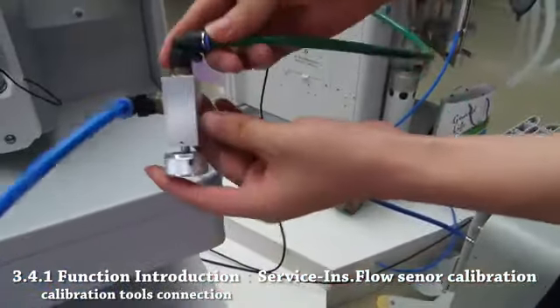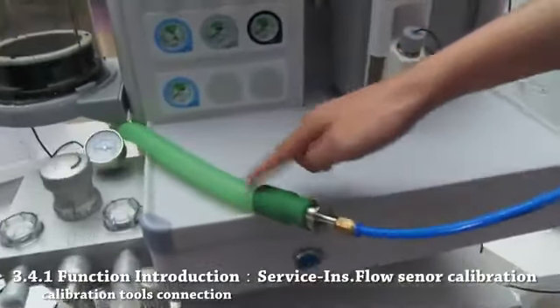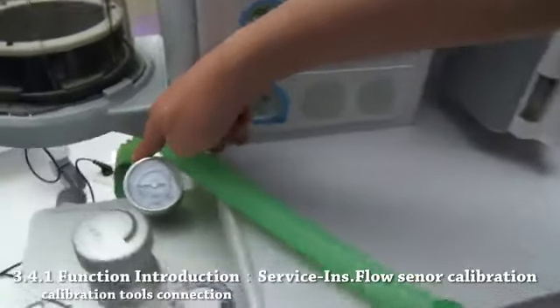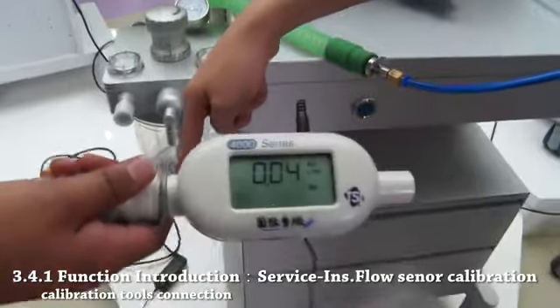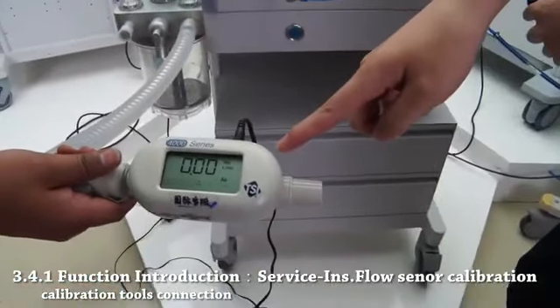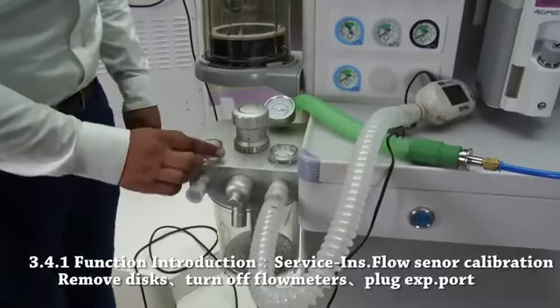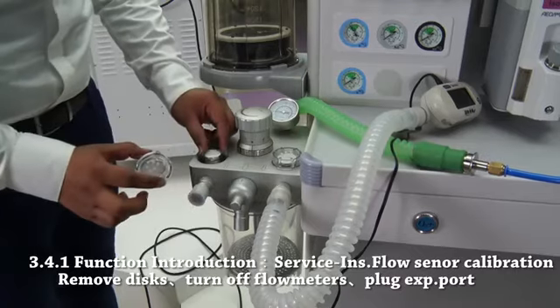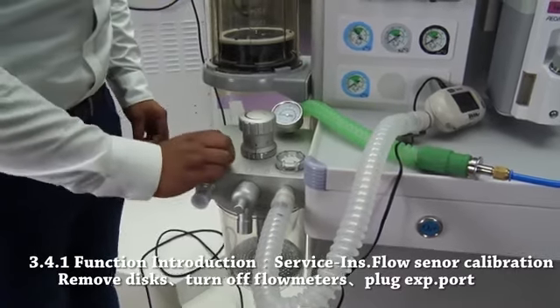This is throttle valve. And this is VT monitor. These are steps 1, 2 and 3, so make sure to remove discs, turn off the flow meters and plug the expiratory port.